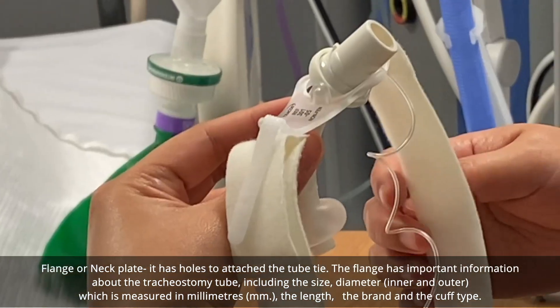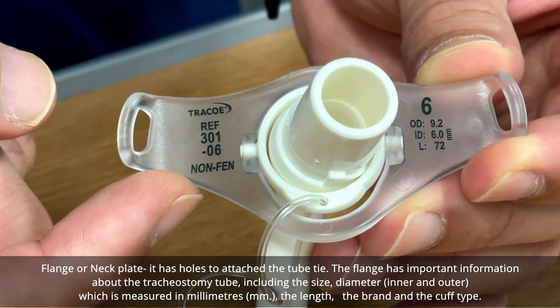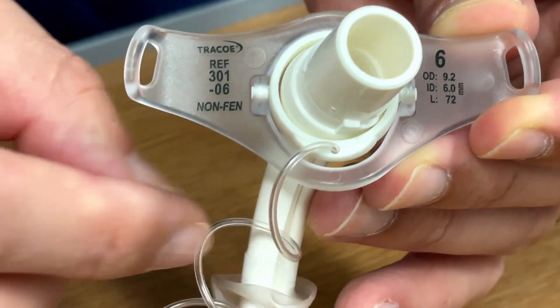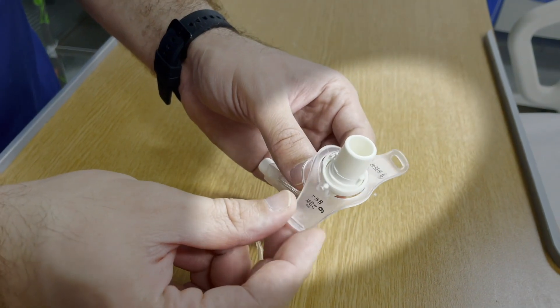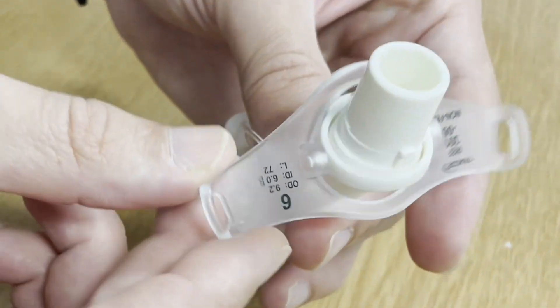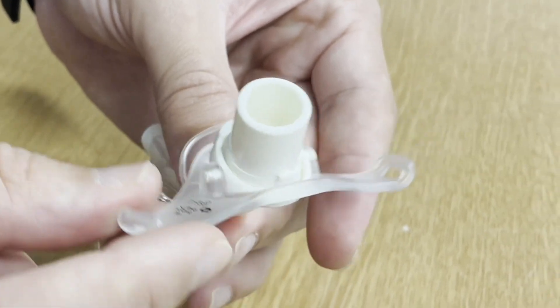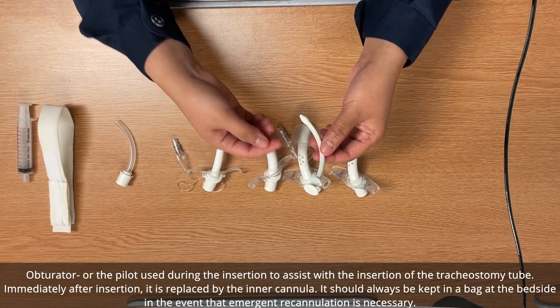The flange, also called the neck plate, has holes to attach the tie and fix the tracheostomy. On the flange, there is important information about the tracheostomy: the size, the diameter, the brand, and the length.